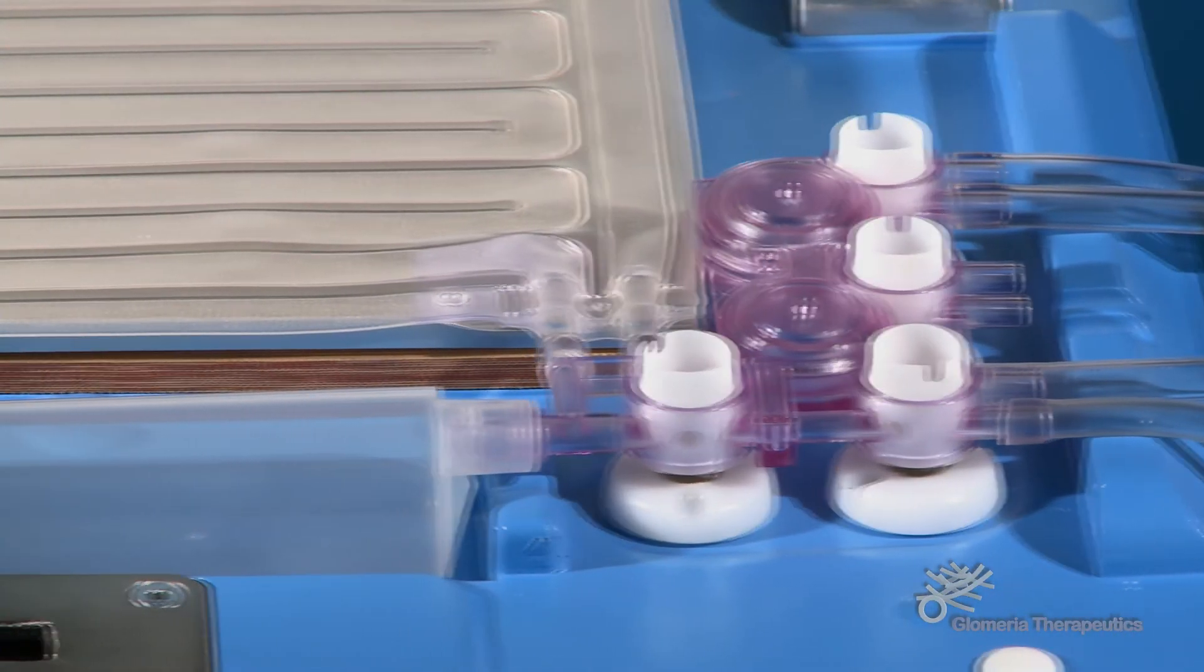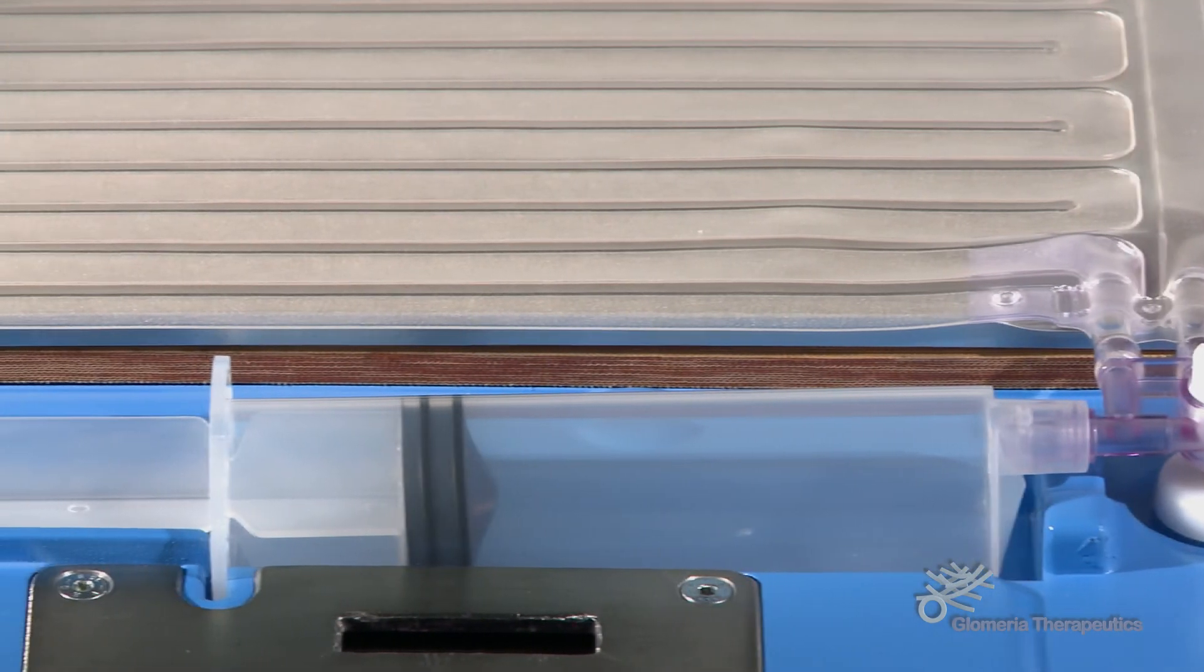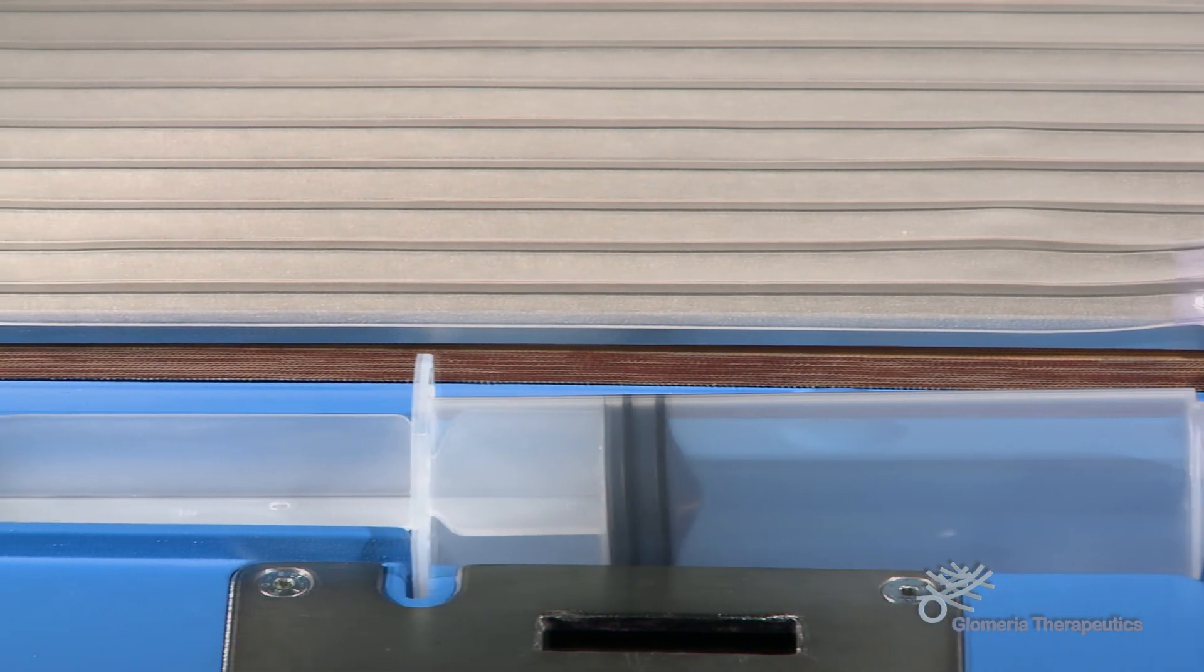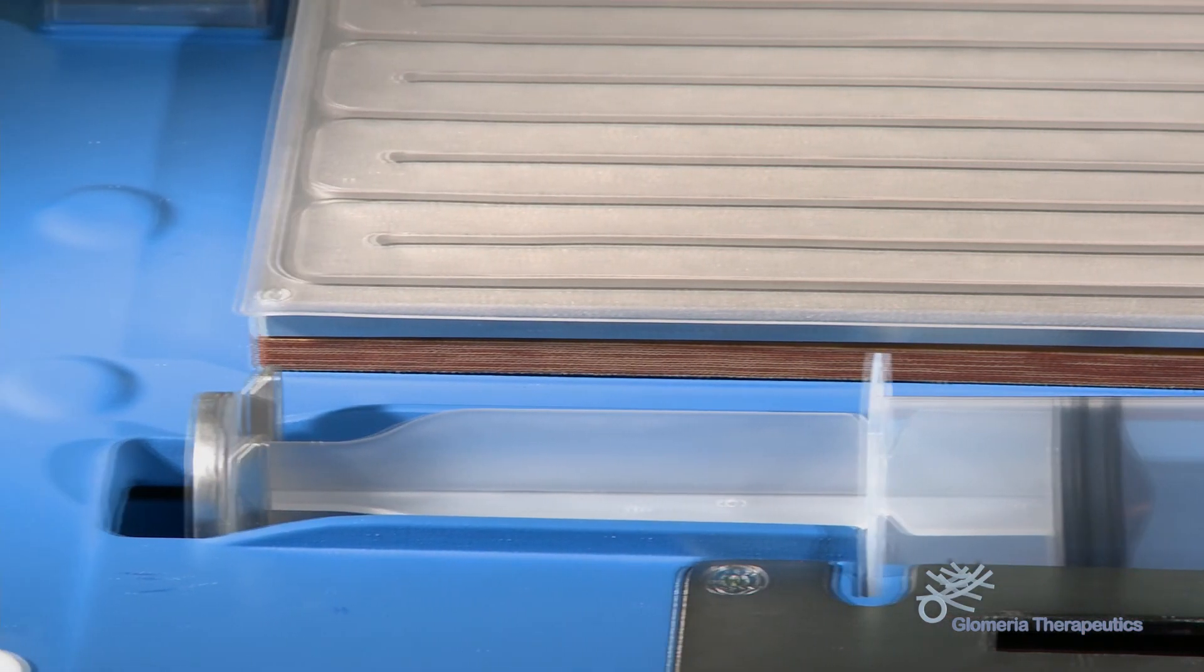SmartPD mixes and infuses with micrometric precision, including an encoded engine linear driven pump and control software allowing the safest and most reliable dialysis functions.